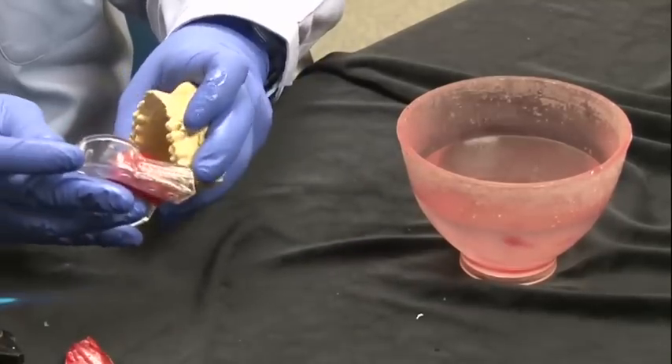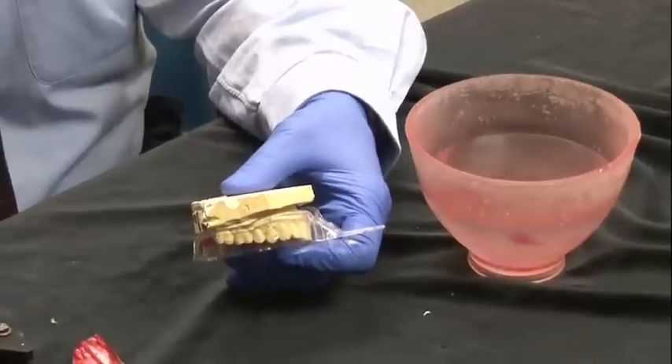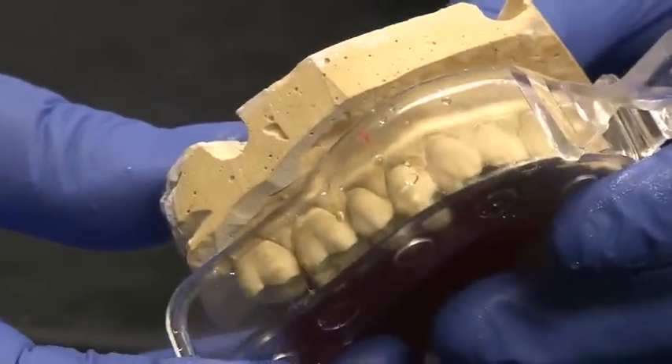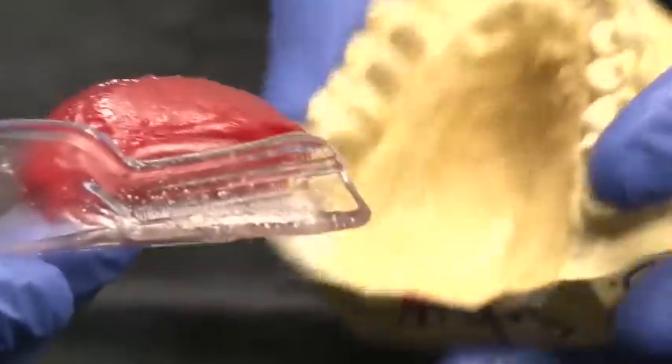What's nice with this is that you seat it to the level of clearance that you want for the teeth. If you look through it — let's get up real close on this — you can see that there's a nice clearance throughout for the teeth.